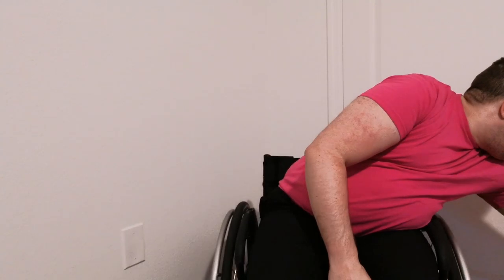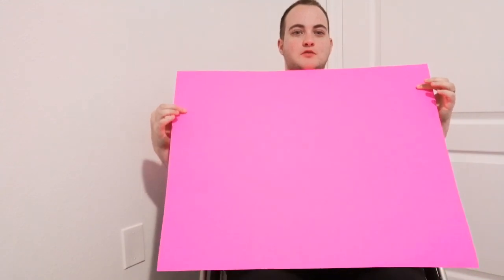Hi, I'm Jude. Today I'm talking about DIY wheelchair stuff because when I first got this wheelchair a couple of months ago, I searched the internet high and low for DIY stuff like spoke guards that I'm going to do today, and how to decorate your chair or how to adjust the seat depth. I came up empty mostly — it's been insanely difficult to find DIY videos about wheelchairs. So I'm here to do a spoke guard today. Spoke guards cover the spokes on the side of the chair, but they cost about two to three hundred American dollars. So I'm going to show you how to make them for less than a dollar.